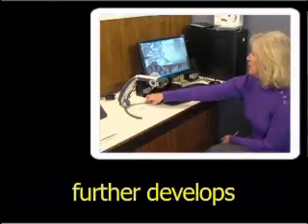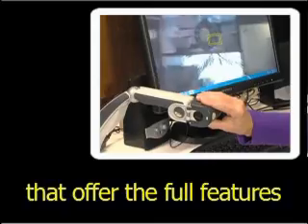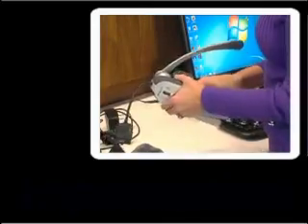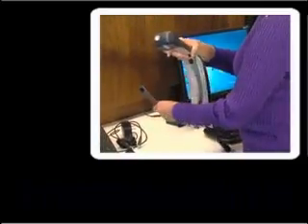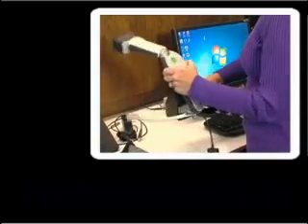As this technology further develops, we can expect to see units that offer the full features of a desktop model in a truly portable package. Another user positions a camera mounted on a curved holder attached to a U-shaped stand positioned next to a laptop.